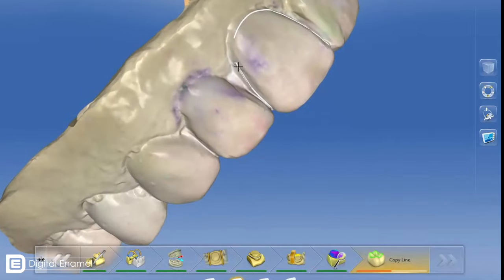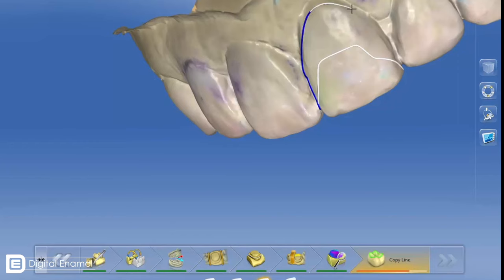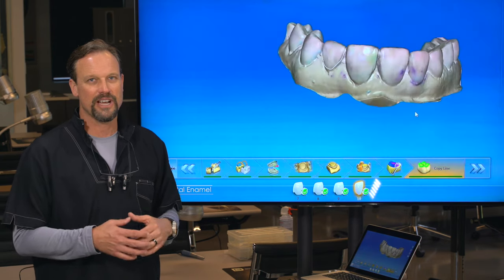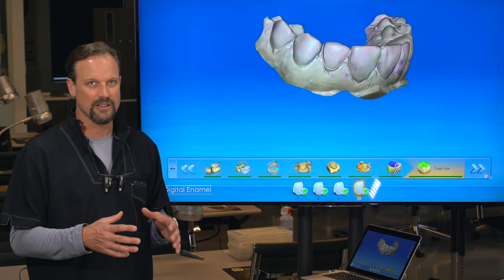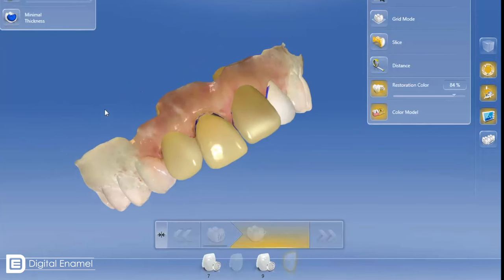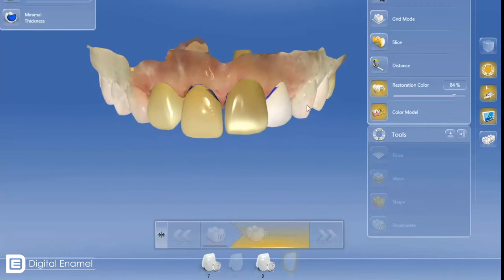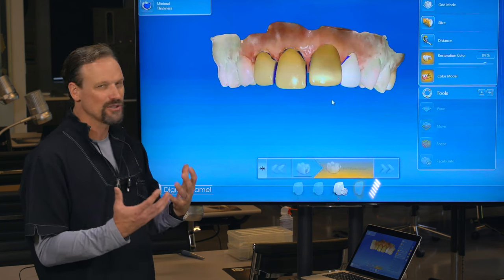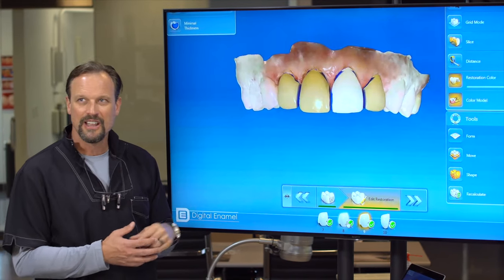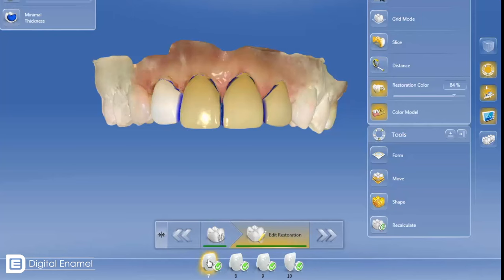What you're seeing here is our wax-up. These blue markings were just for me to remind me that I'm going to do my little laser gingivectomy. But we're telling CEREC to copy that wax-up exactly, so we already have all of that worked out before Lori ever comes in. What we're seeing here is the 4.5 software — it's much more lifelike. The proposals are a little bit dark; you can turn those up or down. I like them very dark because then I know exactly which one I'm working on.